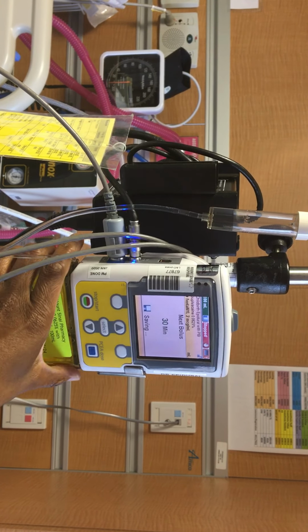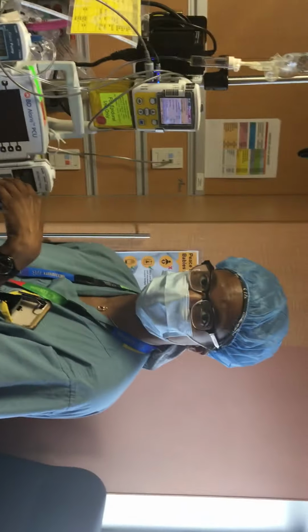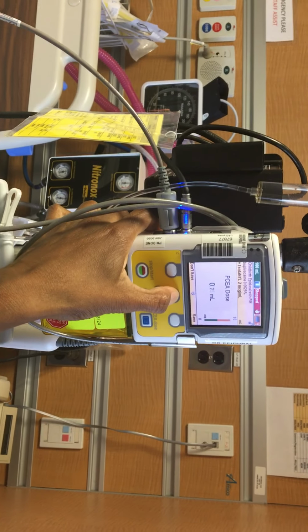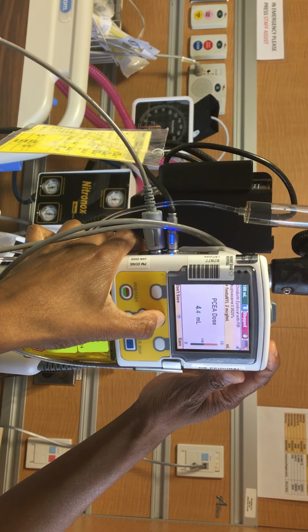And then the next value that it's asking is the dose that the client can give themselves if they need a little bit of extra medication. And I think the dose is usually 5, yes. Okay, so 5, so then you would go up to 5 on your pump, and then you would click save.